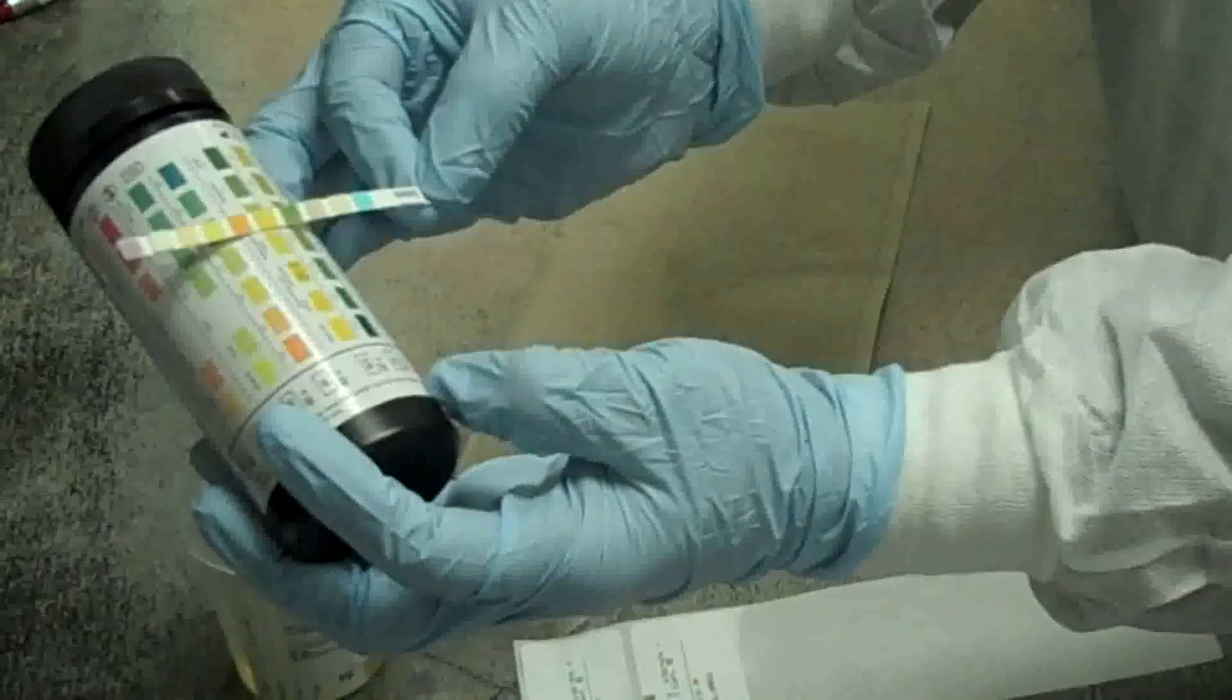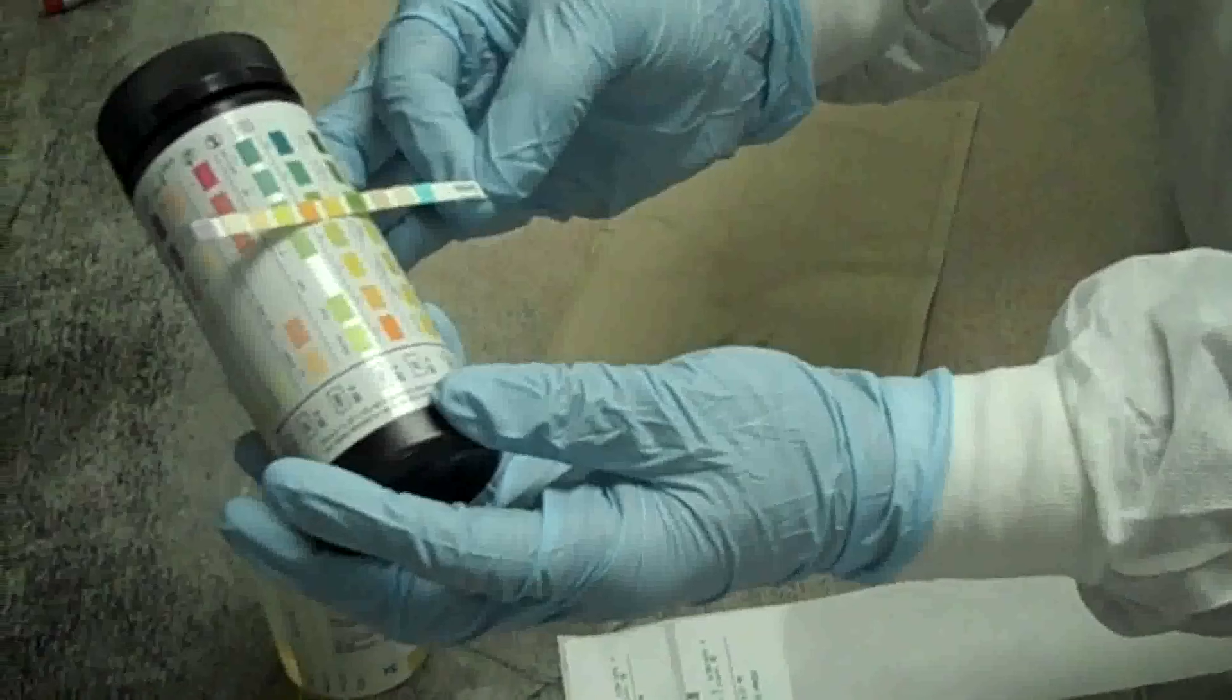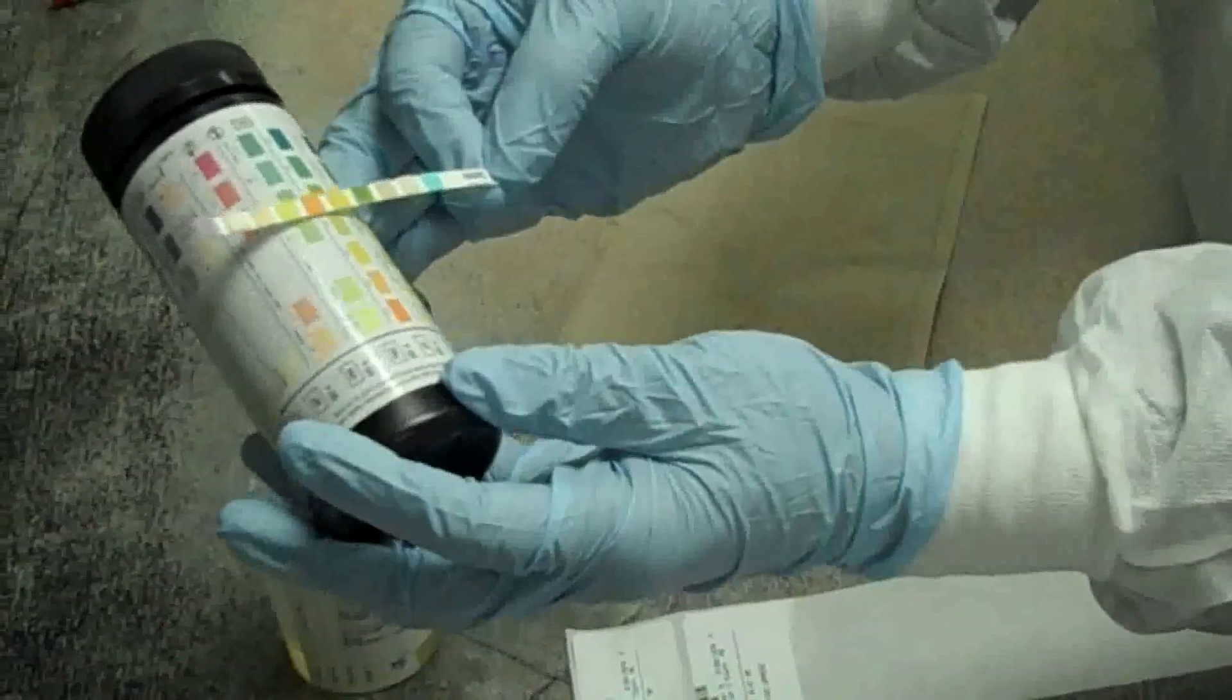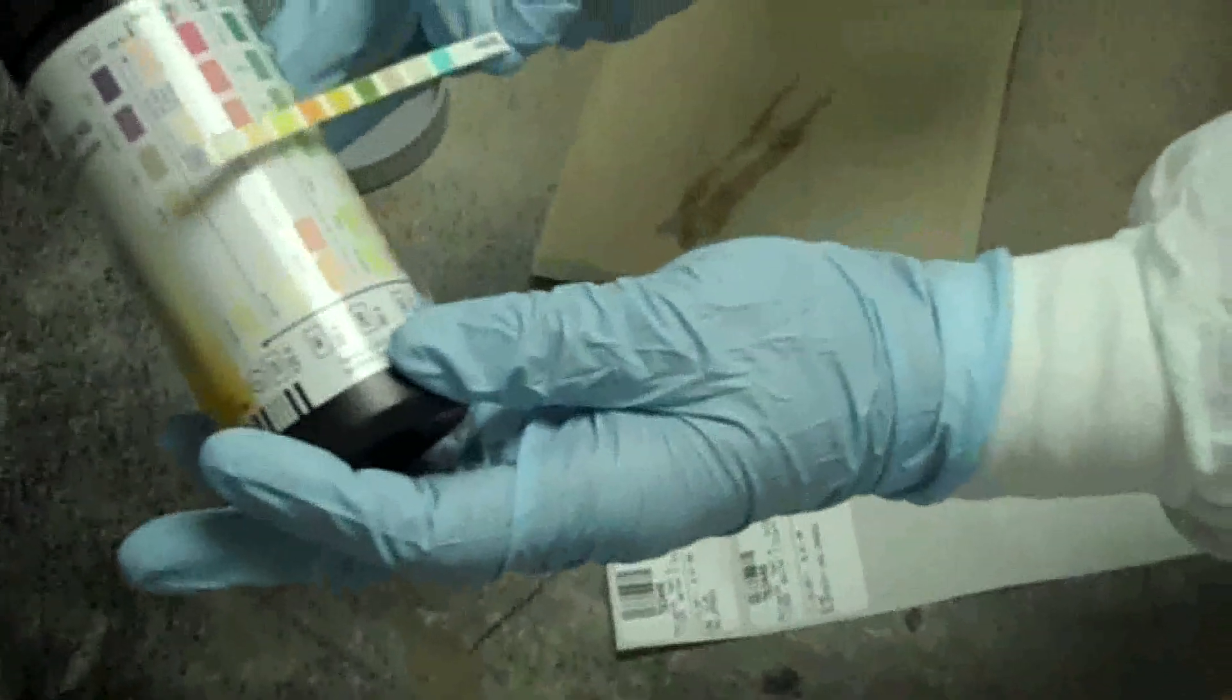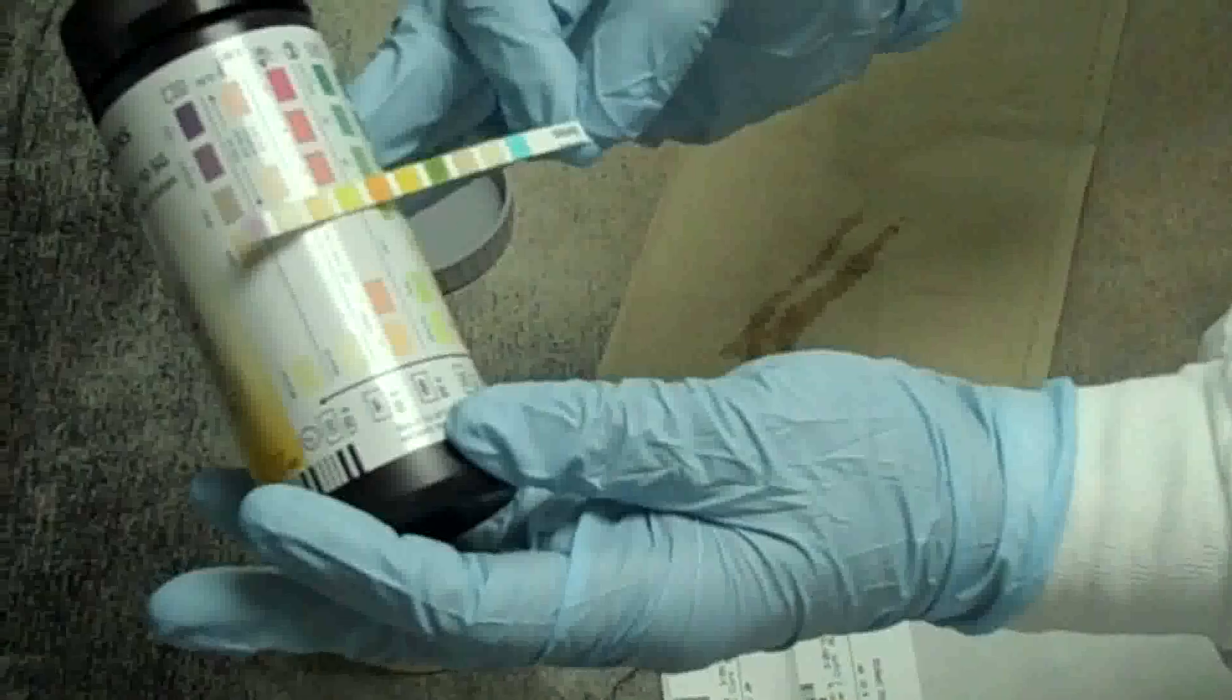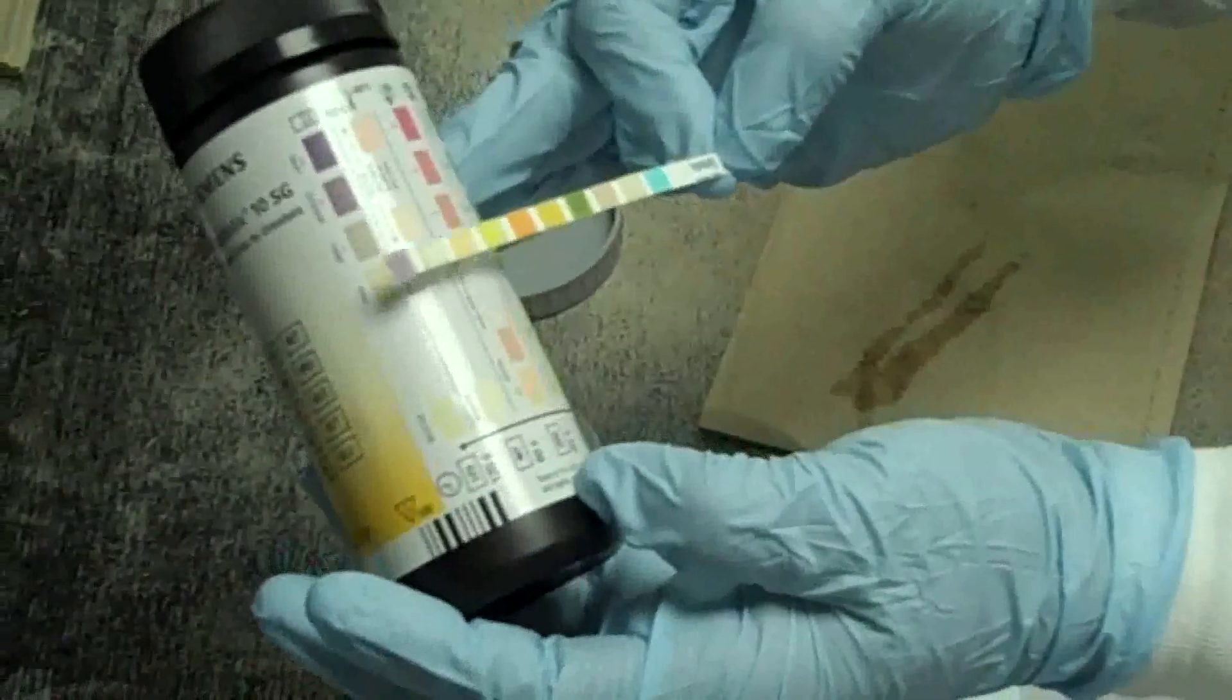At one minute, we will read our blood. Negative. pH. 5.0. Protein. Negative. Urobilinogen. 0.2.